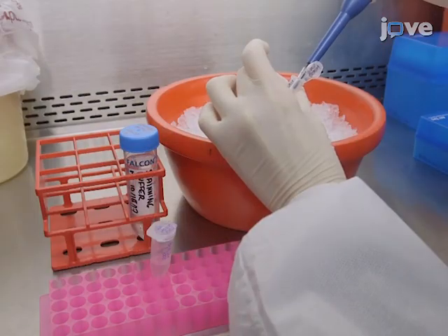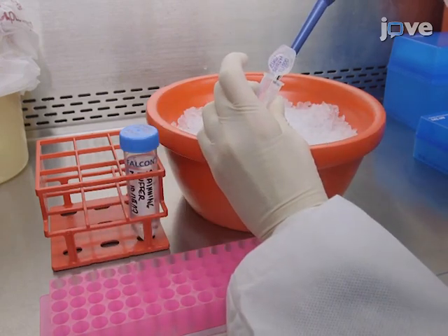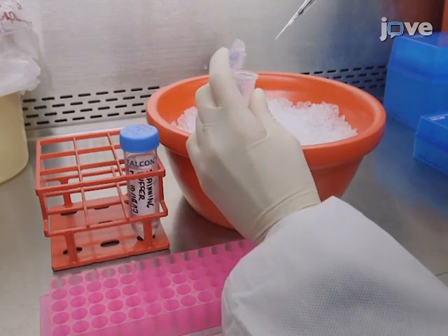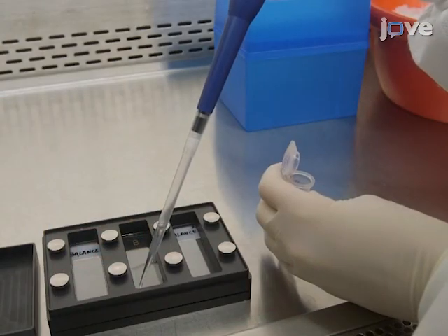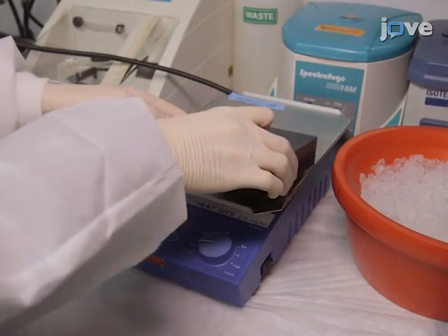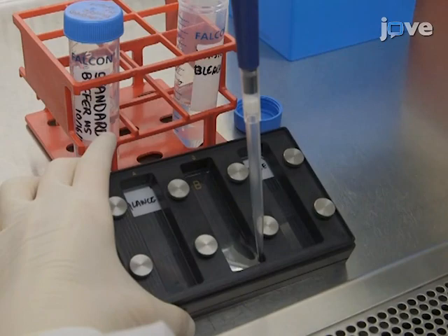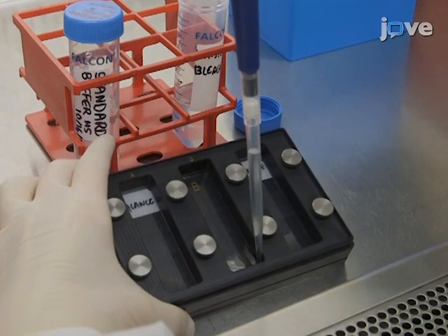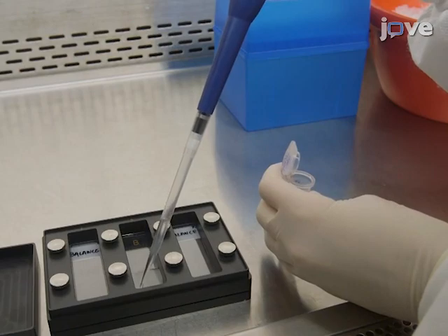Dilute the serum sample in staining buffer starting with 1 to 1000 dilution. Incubate the diluted sample with the microarray overnight at 4 degrees Celsius on an orbital shaker at 140 RPM. Remove the diluted serum sample using the demonstrated technique, then wash the microarray three times as before.